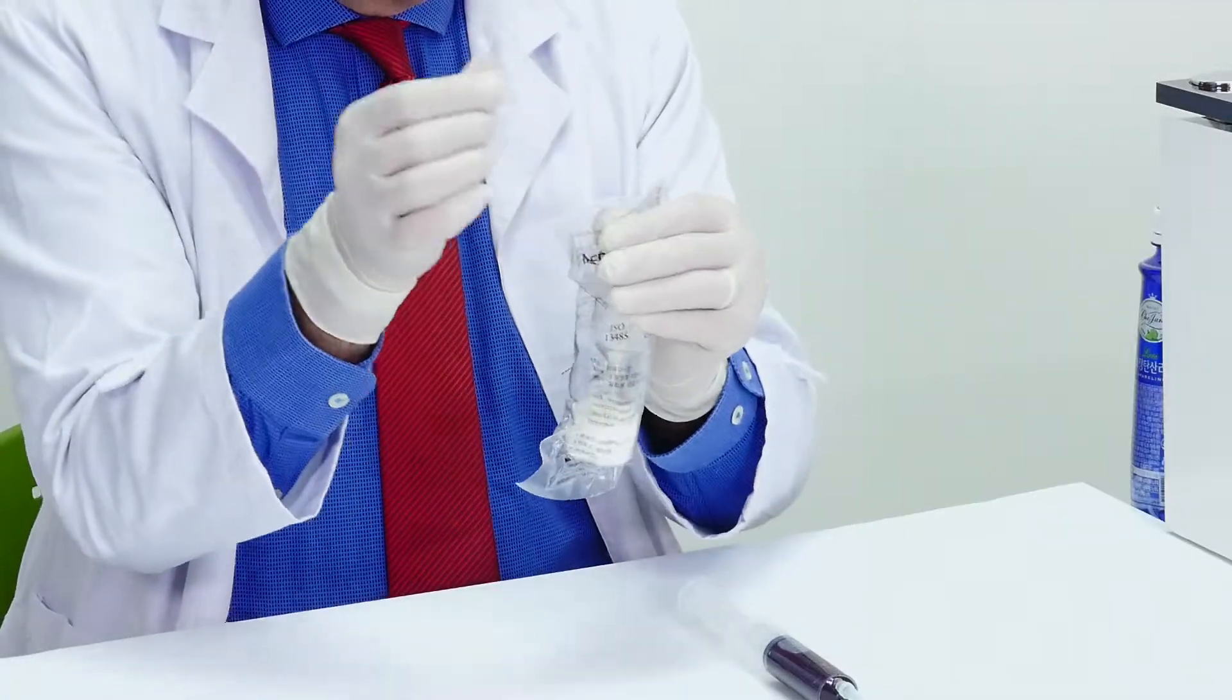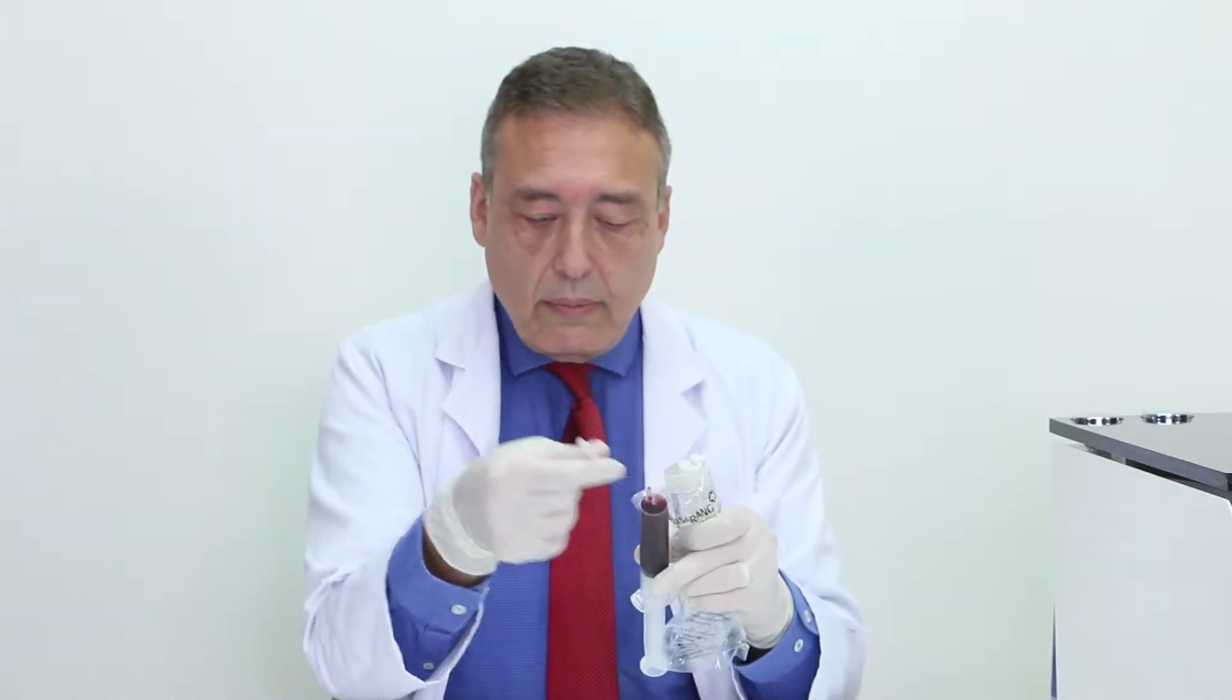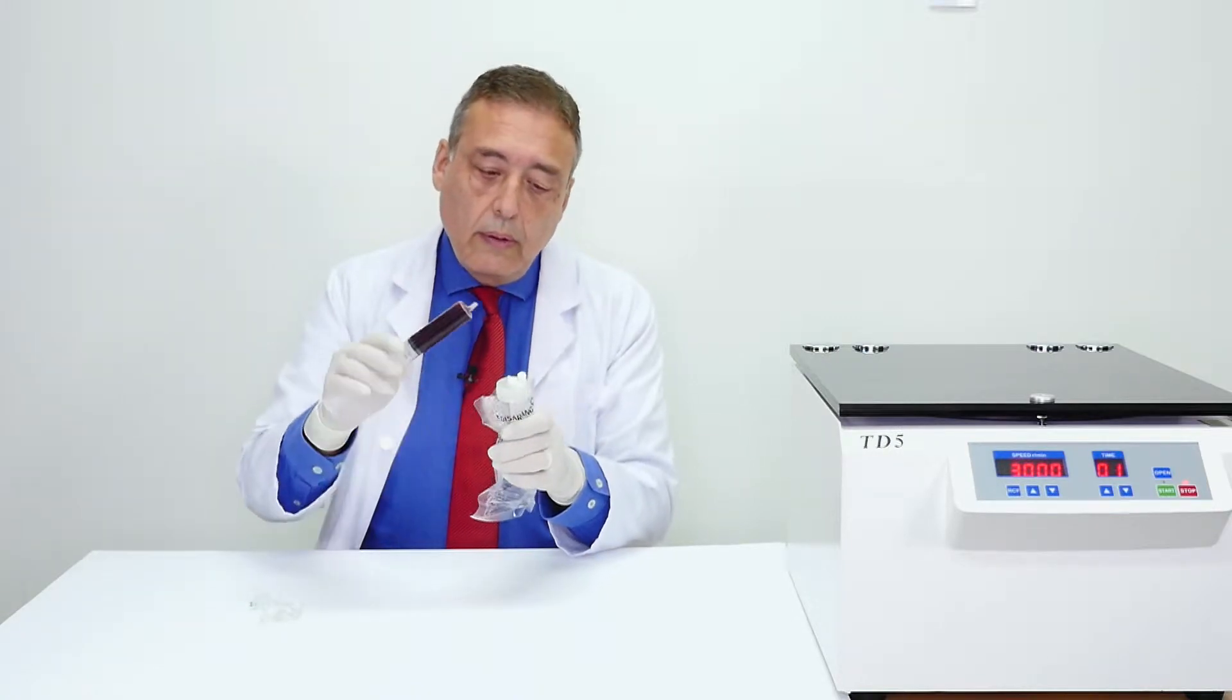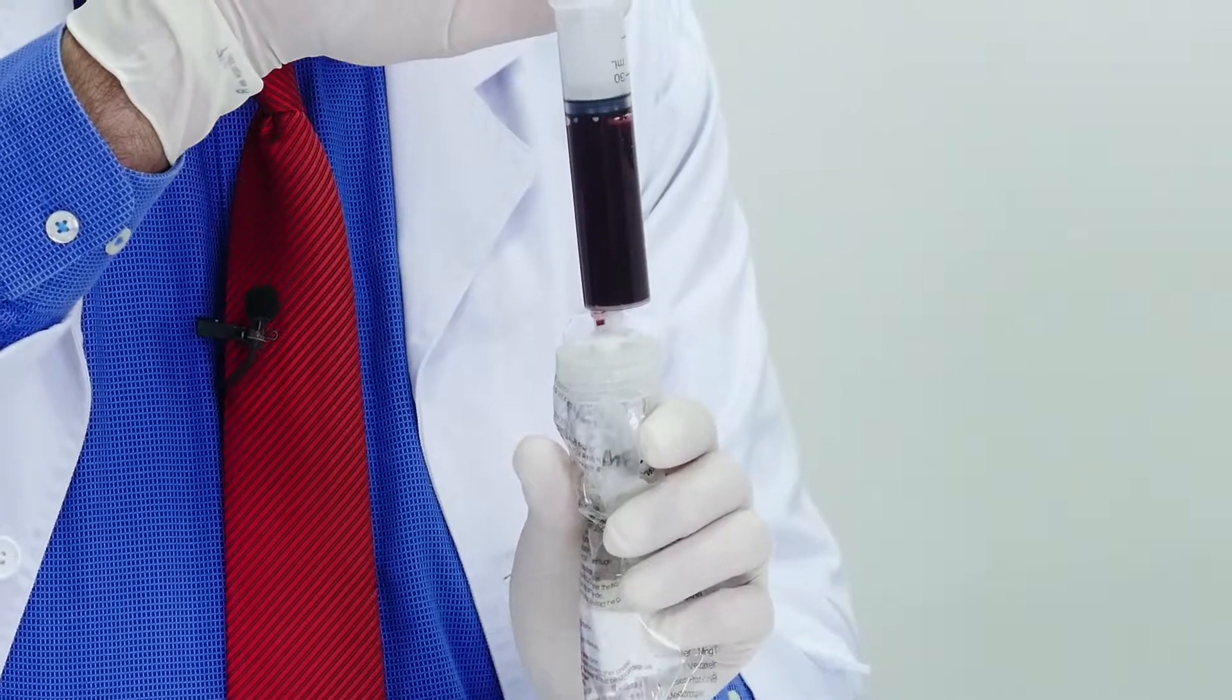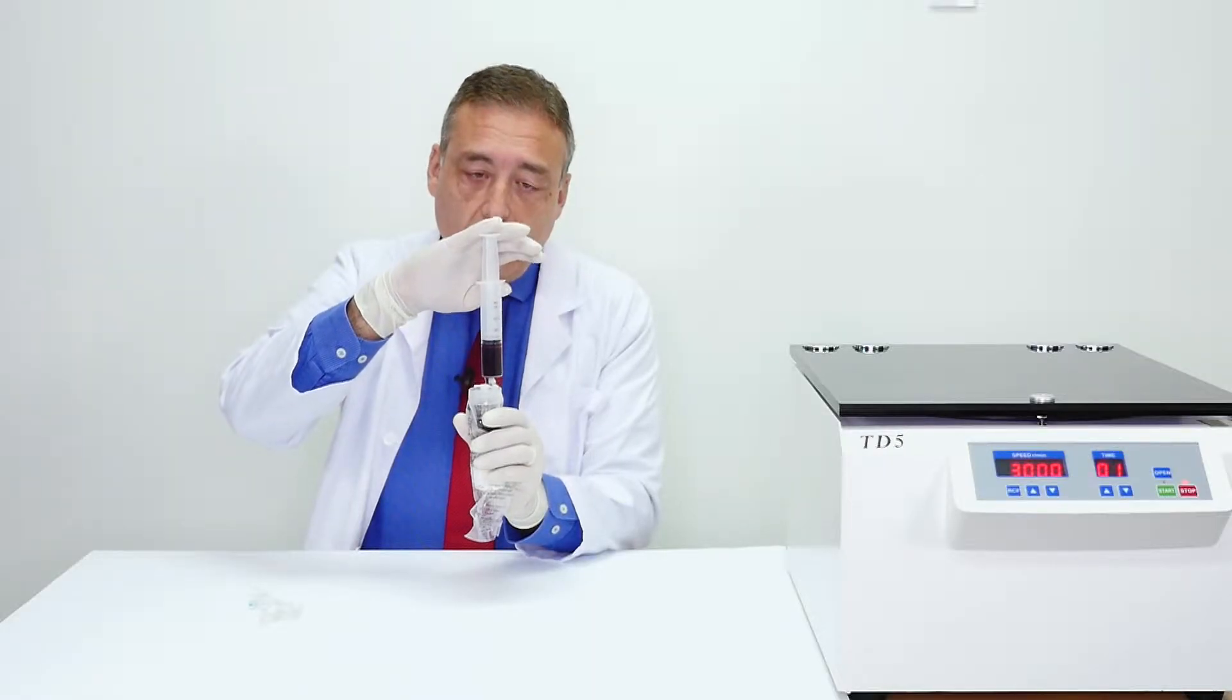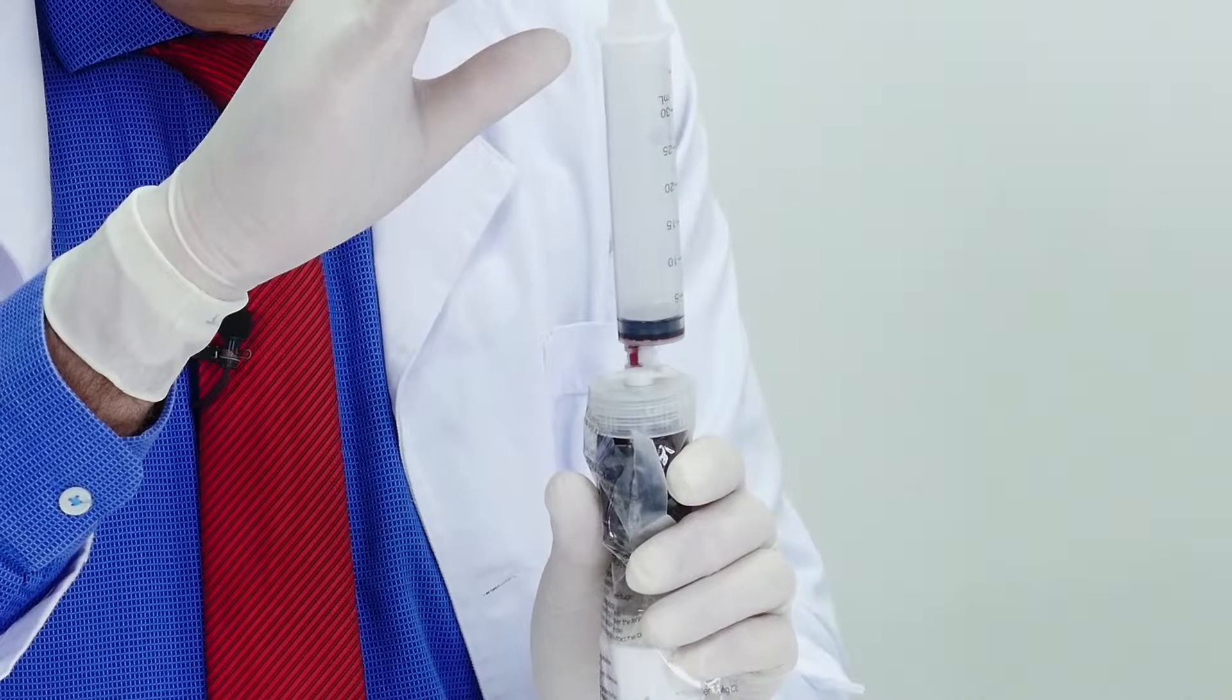Open the bag, getting rid of that. And now you will simply inject the blood in a completely sterile way. Here again, please note that you are treating in a gentle way the platelets so you don't harm them.